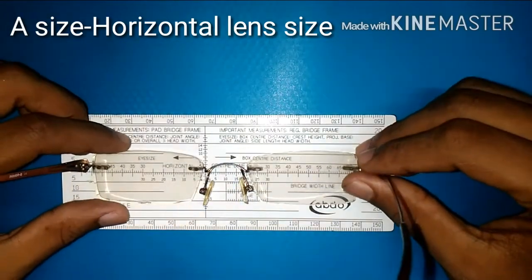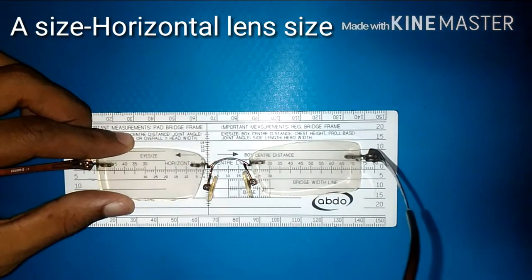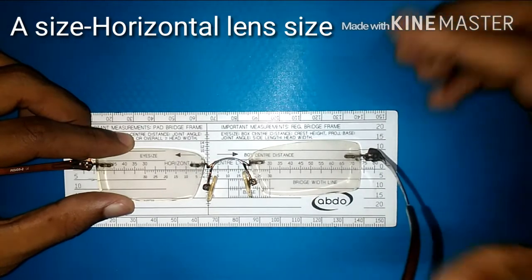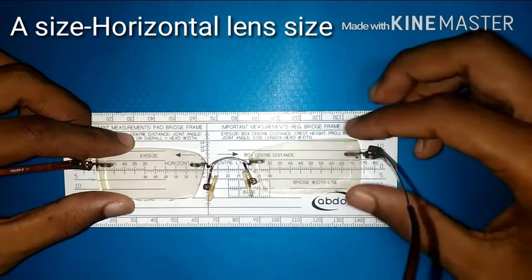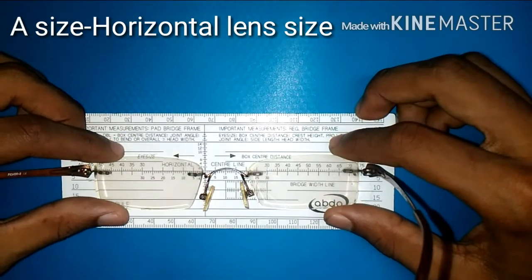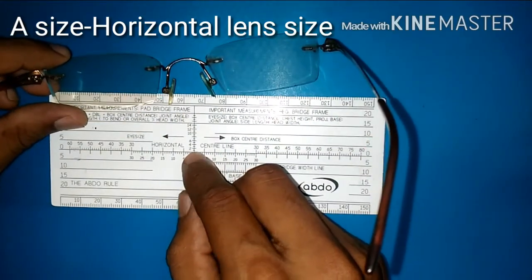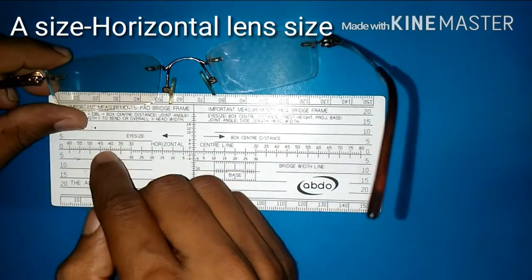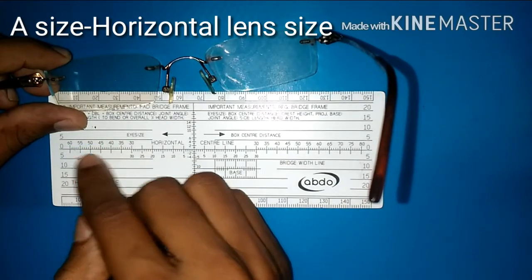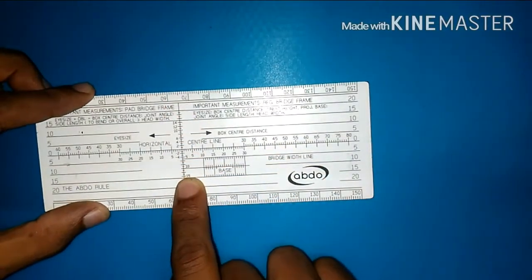To measure the box size it involves both horizontal and vertical lens size. To measure the horizontal lens size, place the frame in such a way that the upper and lower tangent to the lens are parallel, and then place the nasal portion of the frame towards the vertical center line and try to measure the maximum horizontal distance of the lens. This marking is noted as zero and the other end will be placed on any measurement here.